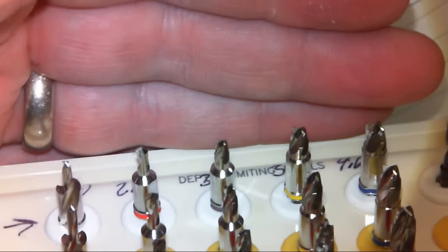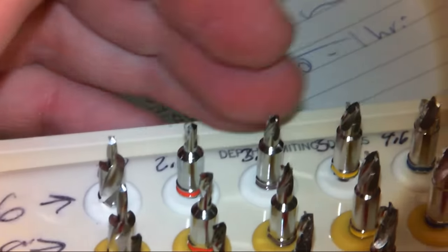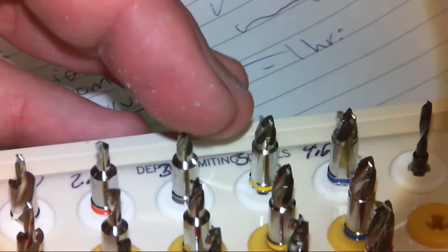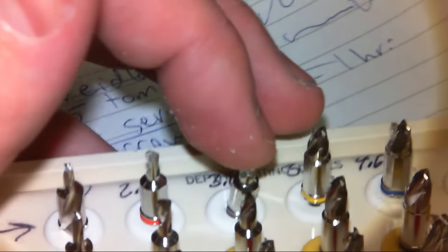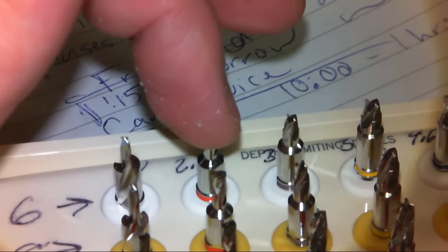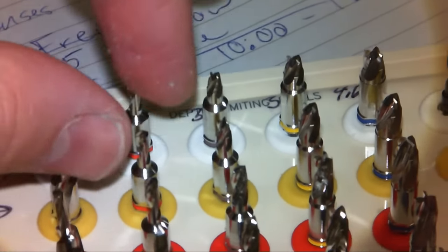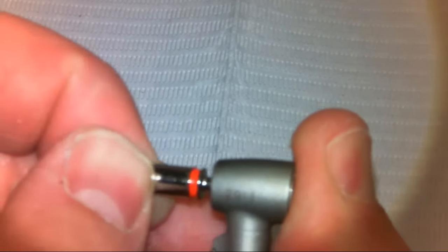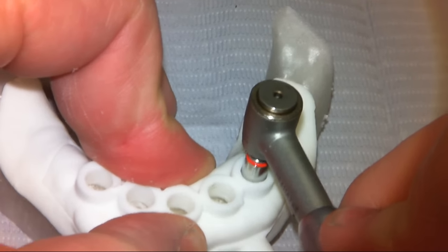We're not going to do that — this was planned for 4.3mm implants. So having started with the 2.5 by 6mm drill, I could now go up to a 3.0 by 6mm drill, or I could go up to a 2.5 by 8mm drill. Let's do that — this is going to be planned for a 10mm length. There's tons of flexibility in the direction you go.